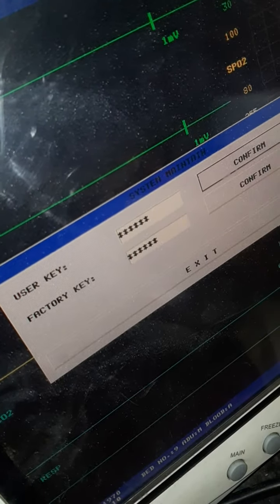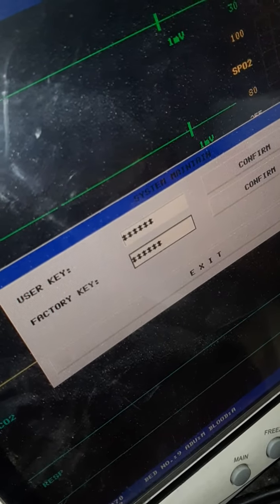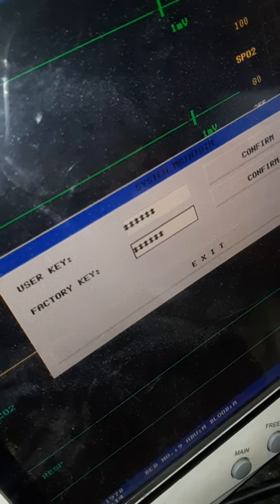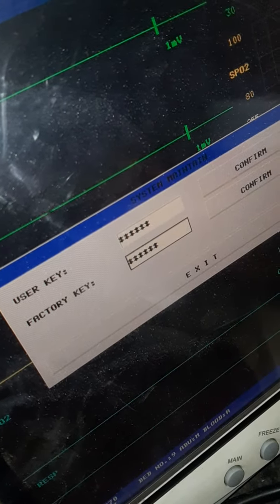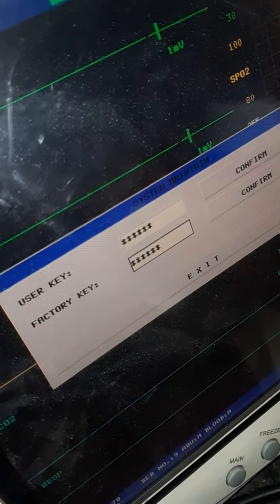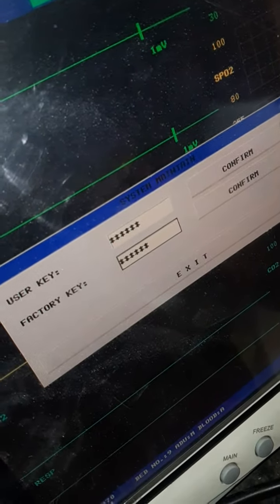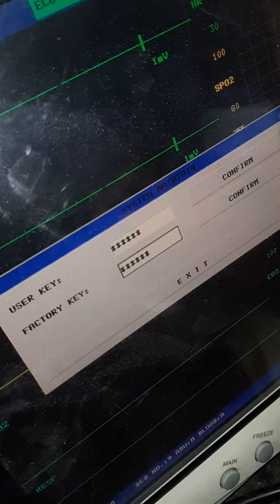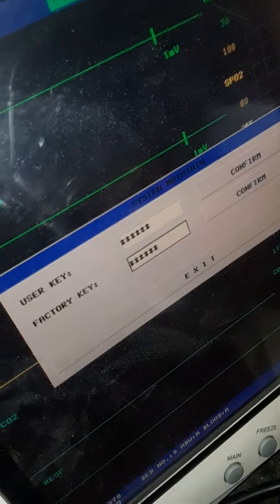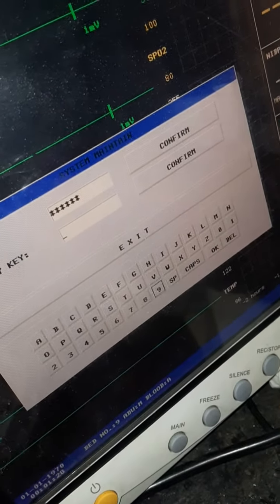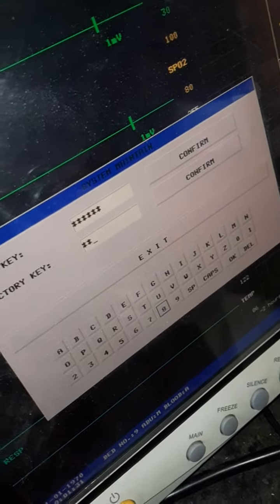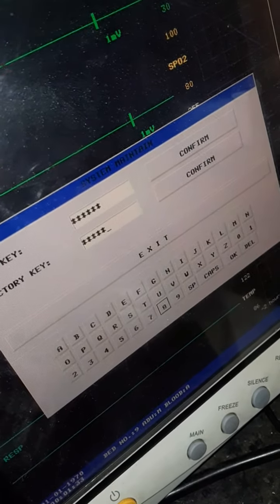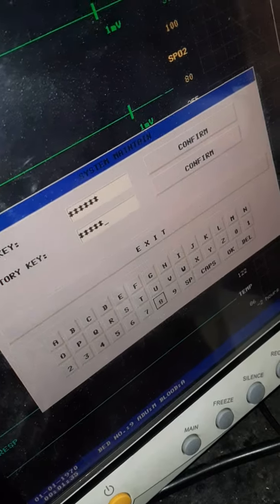The password for the user key is 70808. This is similar for the CMS 5100 model and CMS 8000/9000/7000. The user key is 70808 and the factory key is a little bit secret. I'm giving you the password: press eight five times - one, two, three, four, five. Press eight four five times.